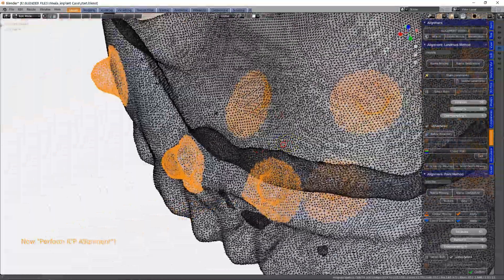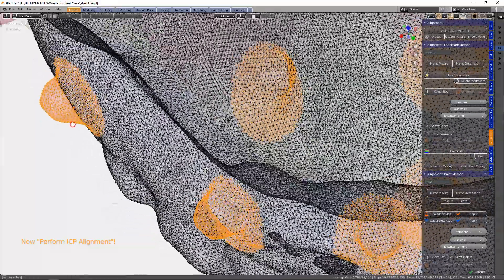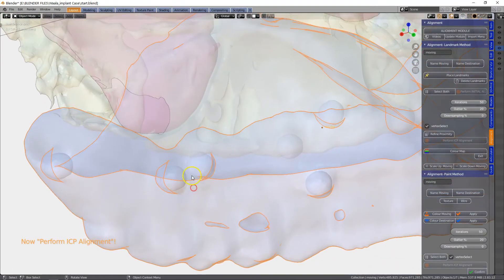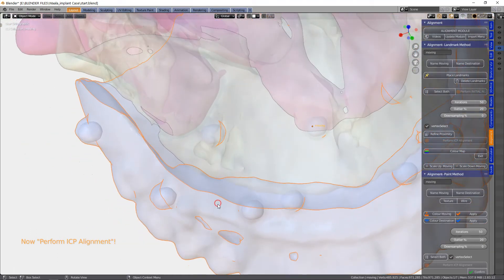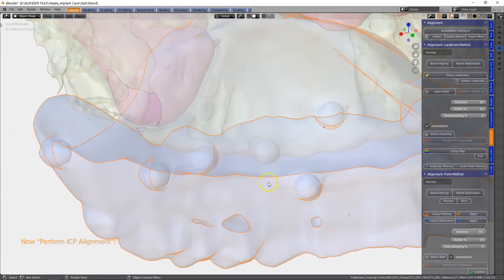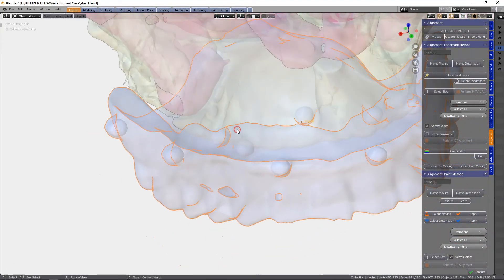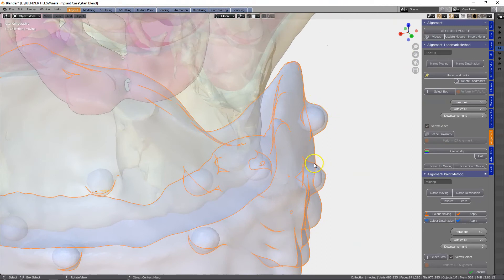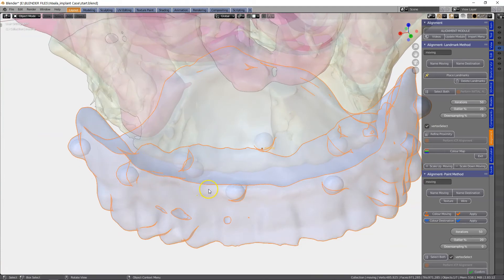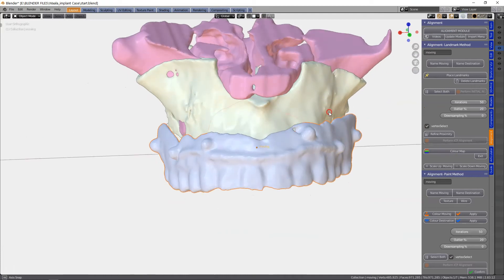Just have a look in transparent mode. You can see our markers are smaller than what our denture is — that's because the person probably put some acrylic or something over these markers. I think tape would be better — just a very, very thin surface. Otherwise we're going to end up with a bulge over the cross of it, and that is not the ideal way of doing it. But here we've got a more or less equal layer. Please bear that in mind — it should just be sellotape or something very, very thin, and not a bulbous insert. We're going to leave it at that.